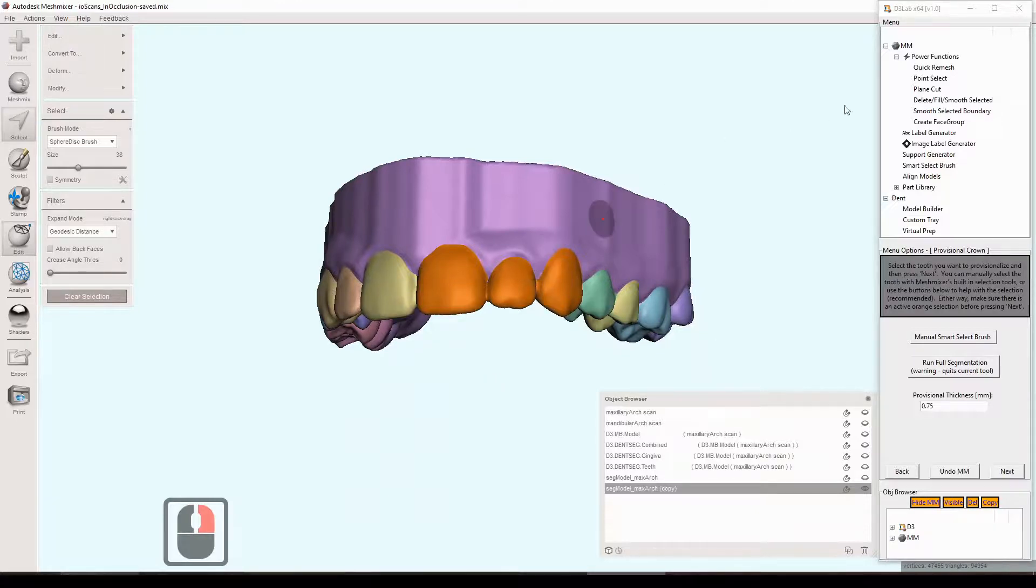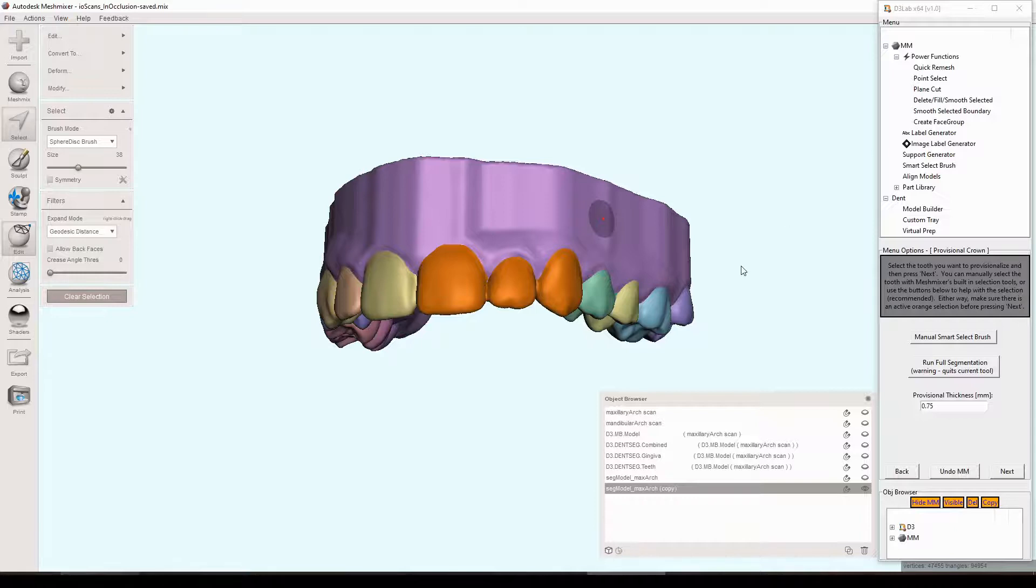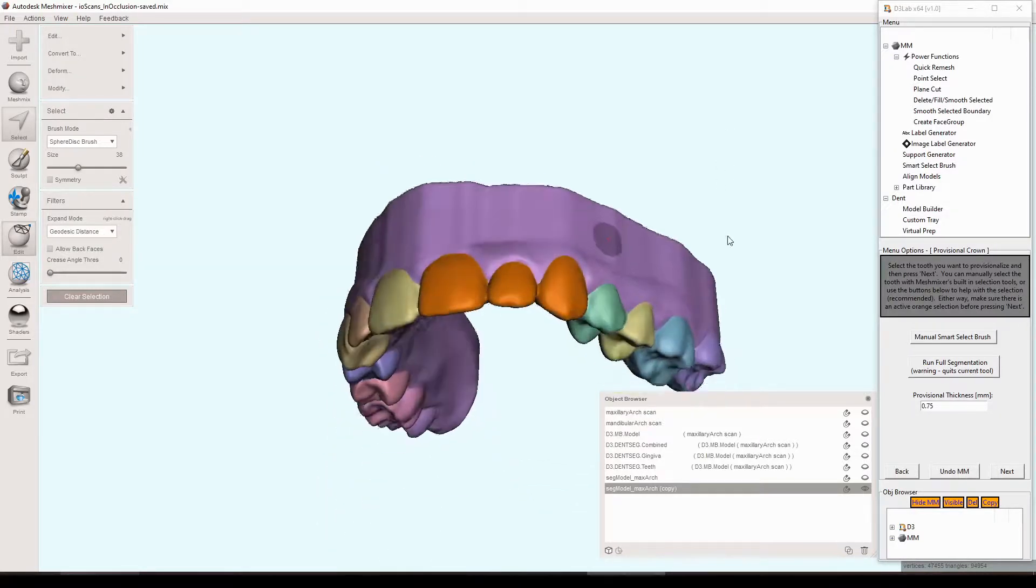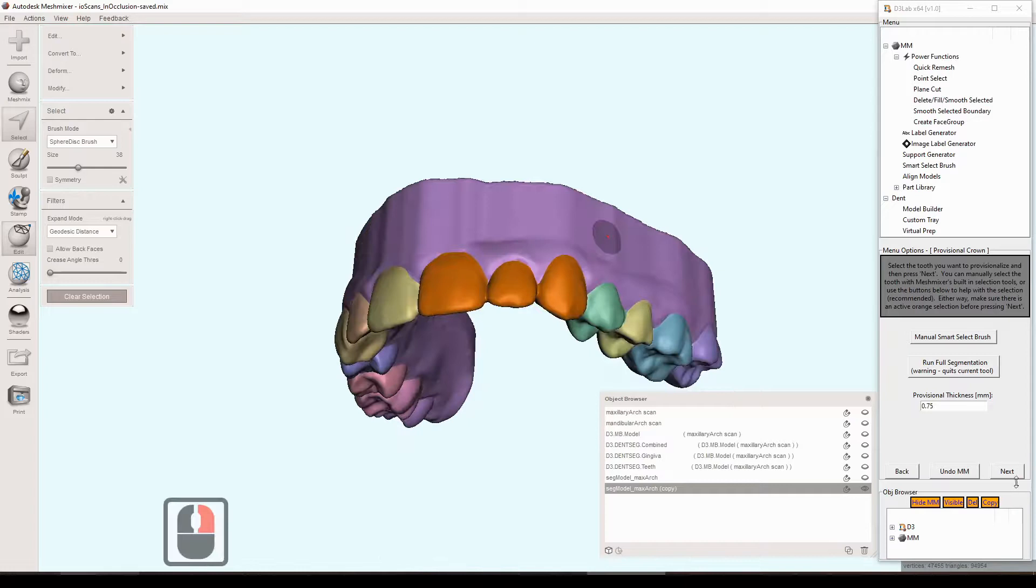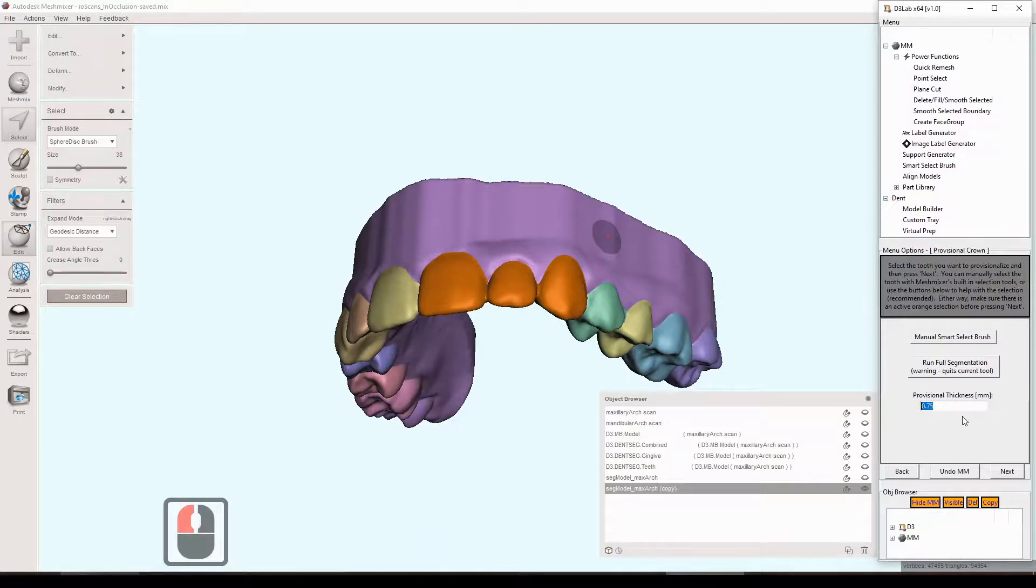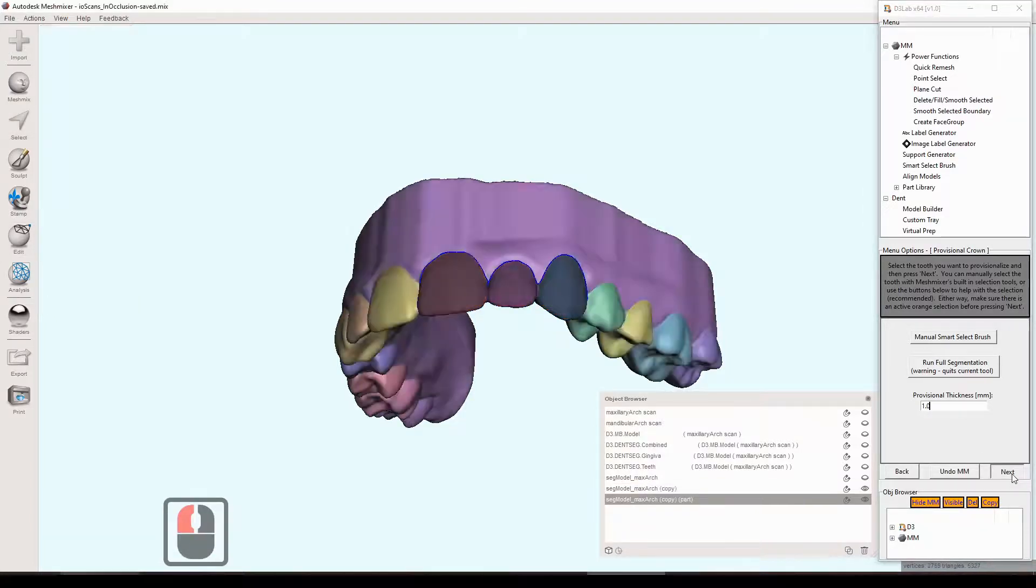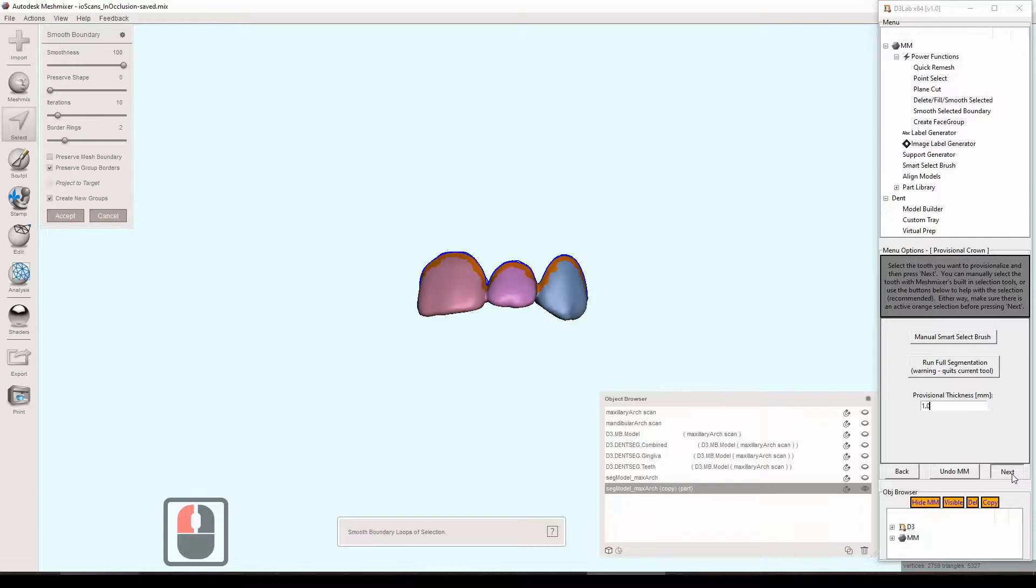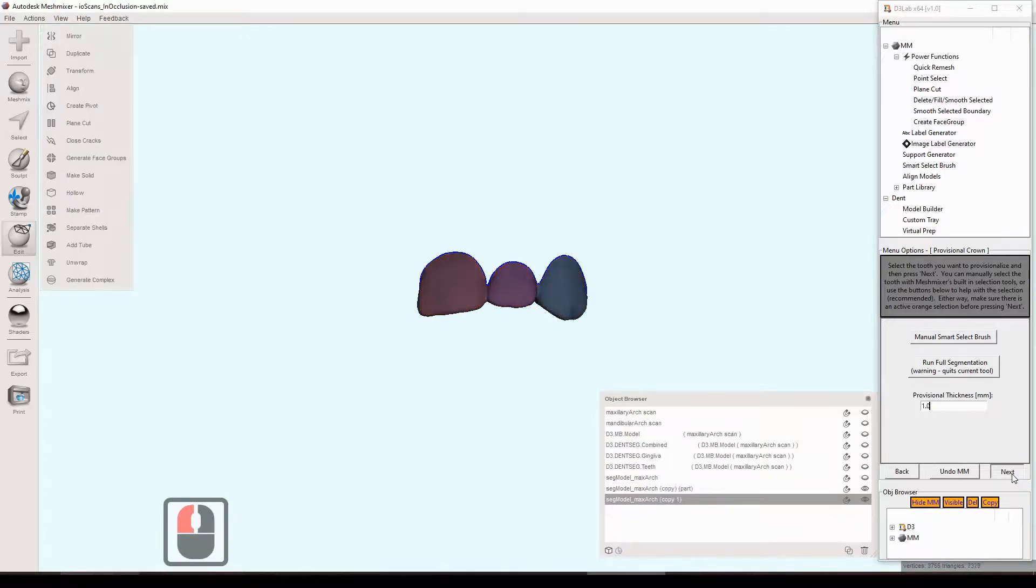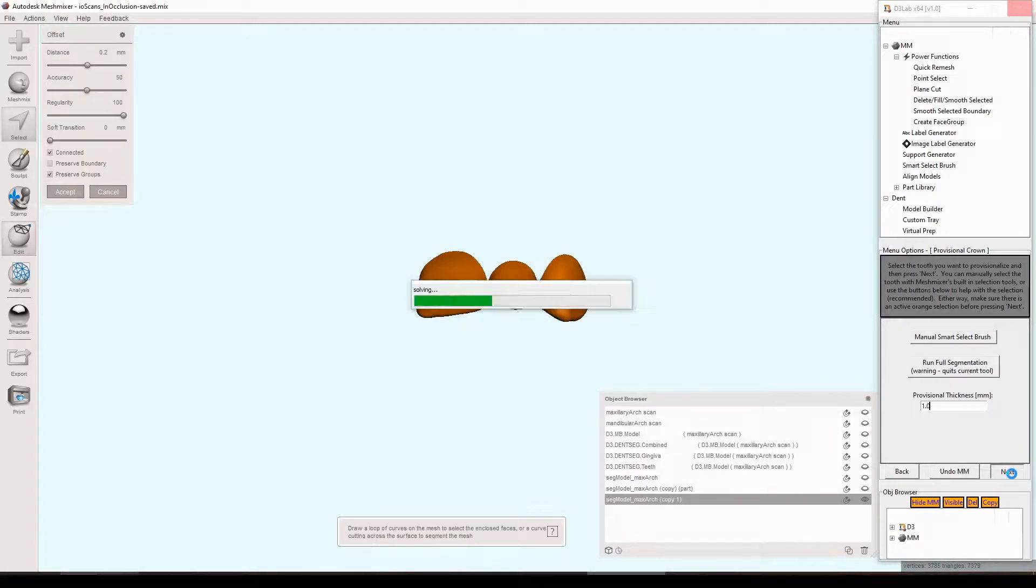Now I'm just selecting the three teeth. And we could use the smooth selected boundary like we've done previously. But it's actually a nice selection already. It's got nice embrasures there. I think if we tried to smooth it, we might get a little bit of a blunted effect. So we'll just keep it like that. And there's an input for provisional thickness. Default is 0.75, but probably it's better to do like one millimeter there just for strictly 3D printing purposes to make sure you got a good minimal thickness and everything like that. Make sure it successfully prints.